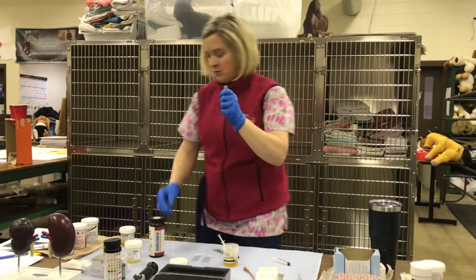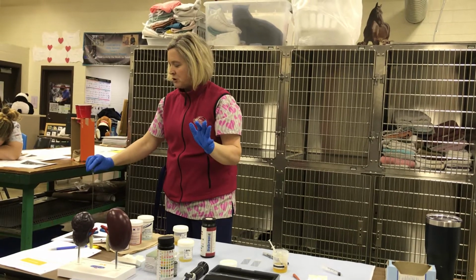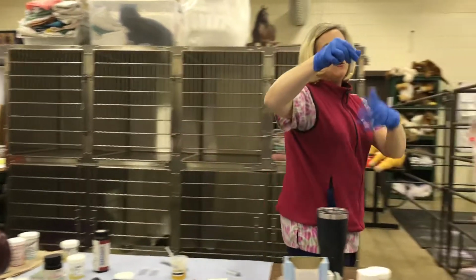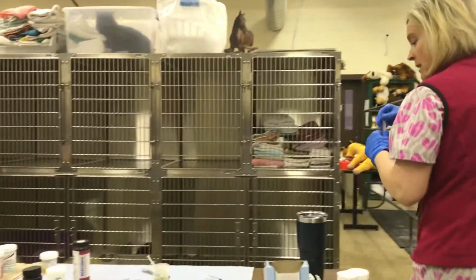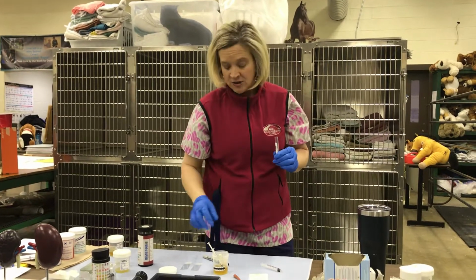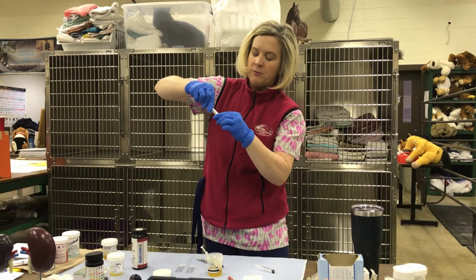You're going to come over to the sink, since we're in a lab with a sink, and pour off your supernatant. Then you'll have a little bit of your sediment, or your plug, at the bottom. The first thing we want to do is get our sample for urine cytology. I take my syringe and pull up a little bit of my urine sample.